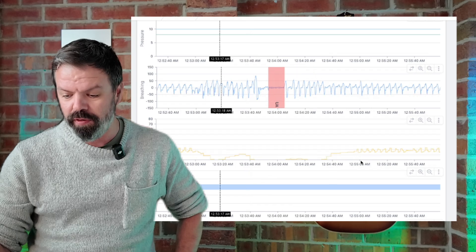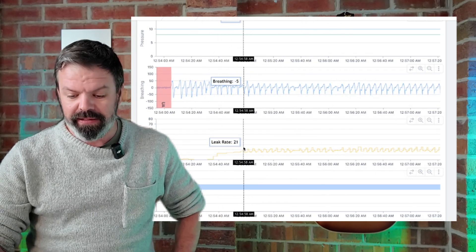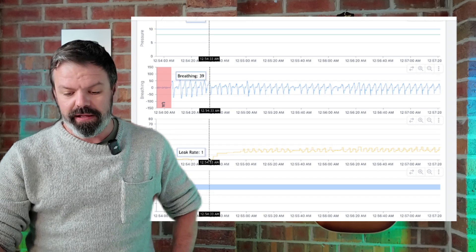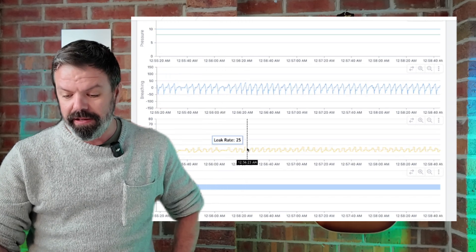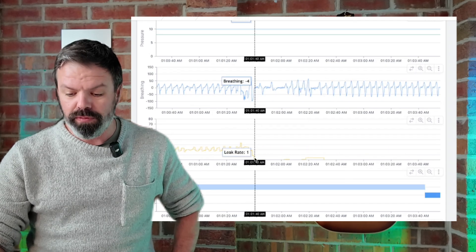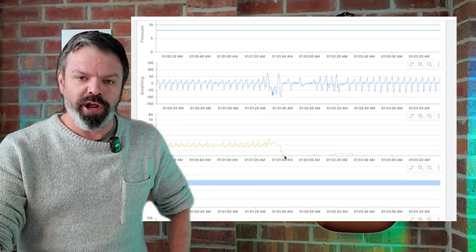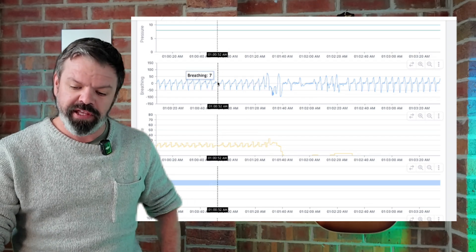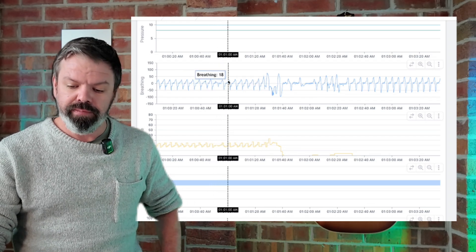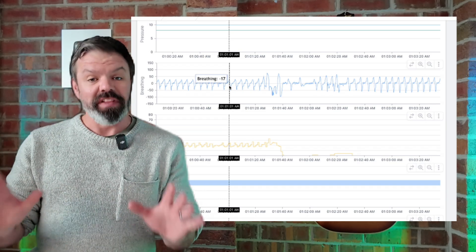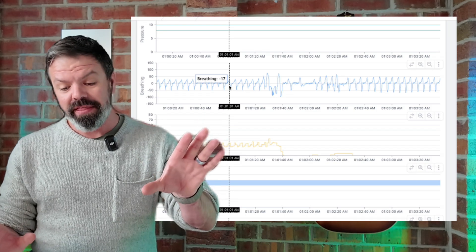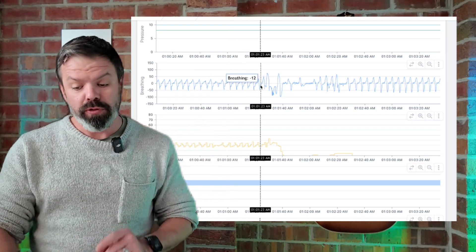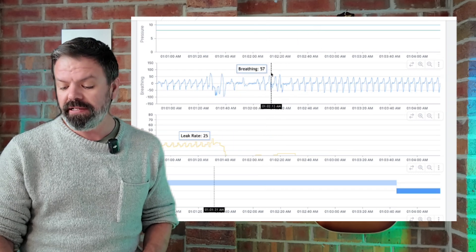Now if we scroll forward, here we go again - leak rate starts up again. Mouth leak increasing, motorboat, and then boom drops back down. And what else can you see right here? Have a look at the breathing trace. It's breathing in, breathing out, despite the large level of leak. A lot of the air is coming out of his mouth. The breathing is relatively stable, however at some point it wakes you up. You can see it here.